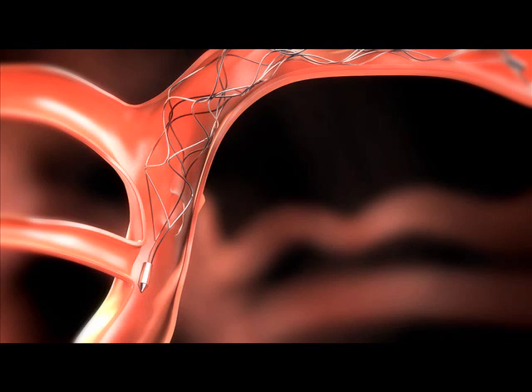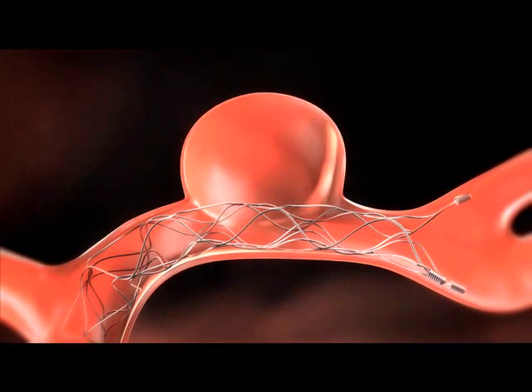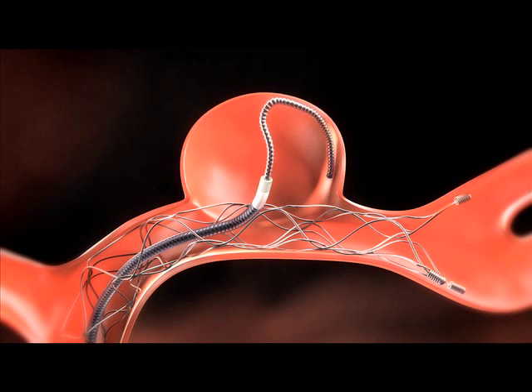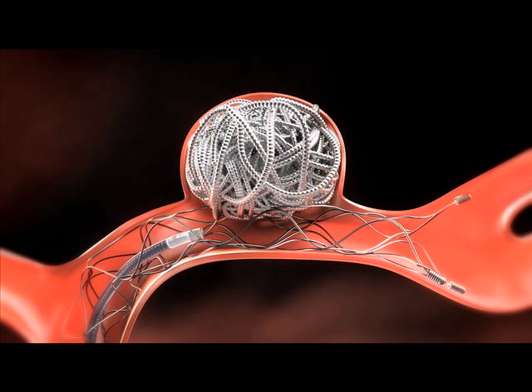When performing the technique of placing embolic coils into the aneurysm through the interstices of the Solitaire AB, use a micro catheter with a distal tip of less than or equal to 2.5 French. Perform a standard embolic coiling procedure using accepted embolic coiling practices.